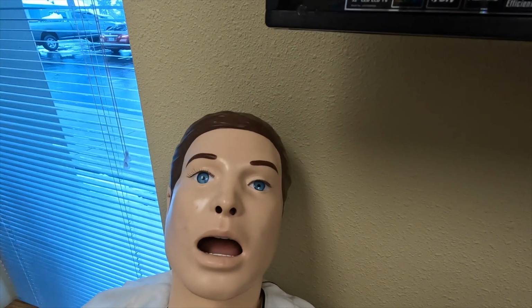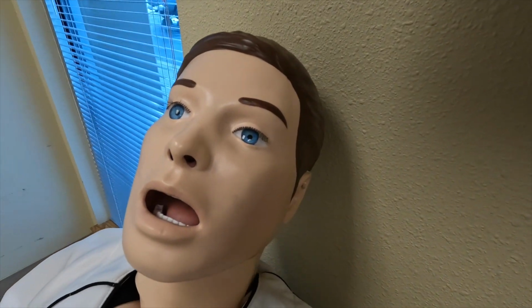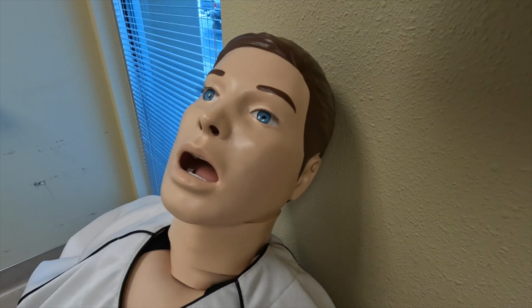In terms of disability, the pupil size can be changed out prior to the start of the scenario, but no pupil response to light or eyelid blinking like in the SimMan 3G+. SimMom is capable of seizures at various levels of intensity. This simulator can also urinate or bleed vaginally if the scenario calls for it.